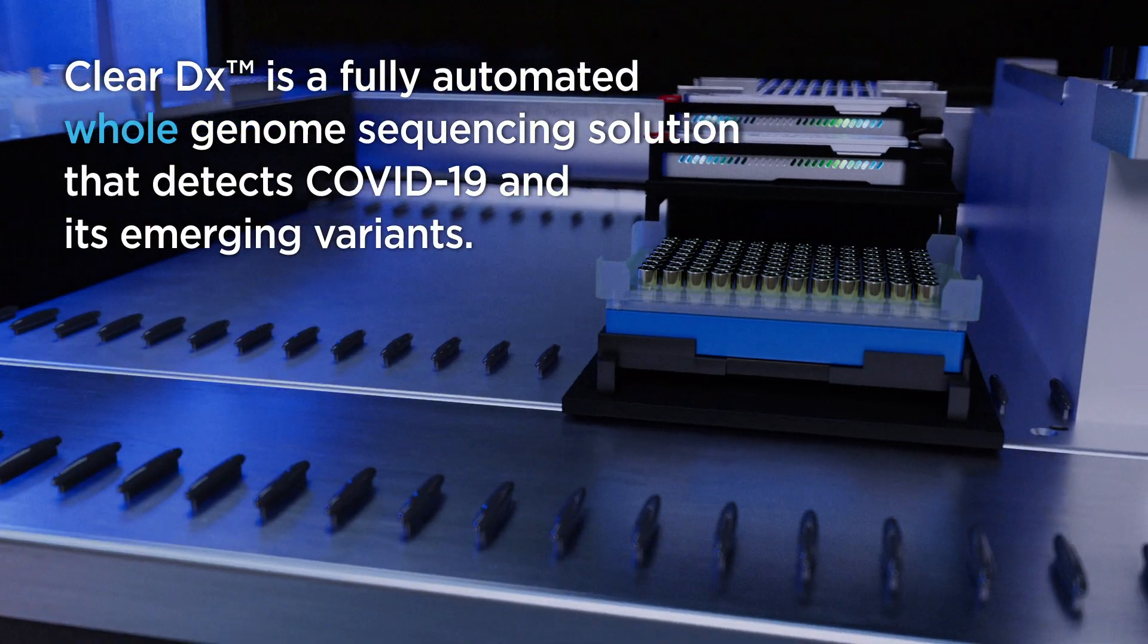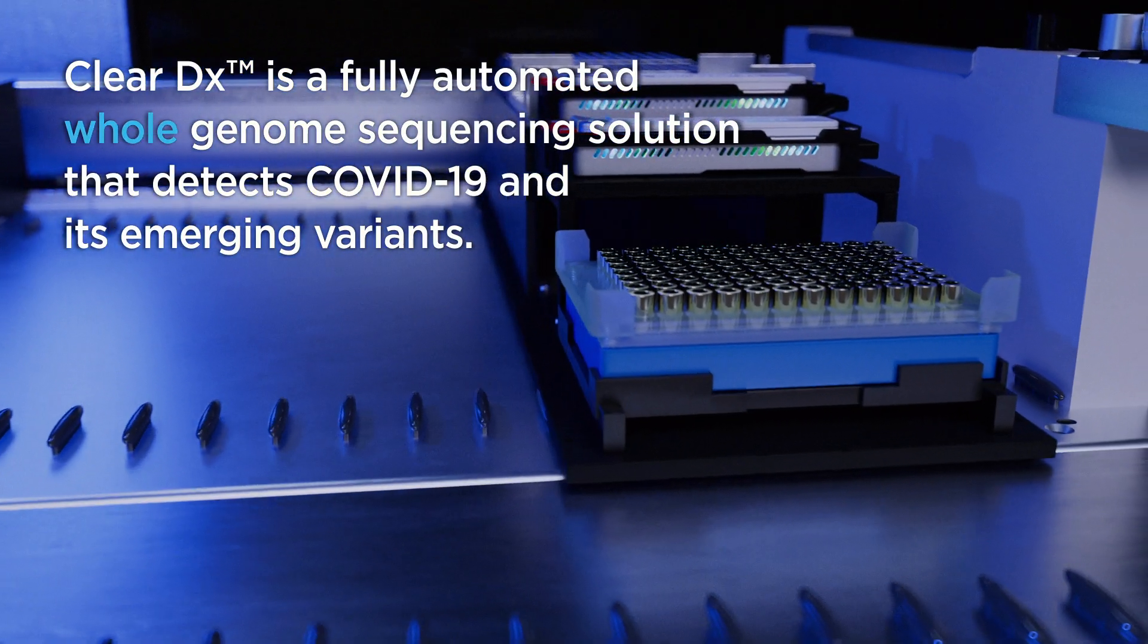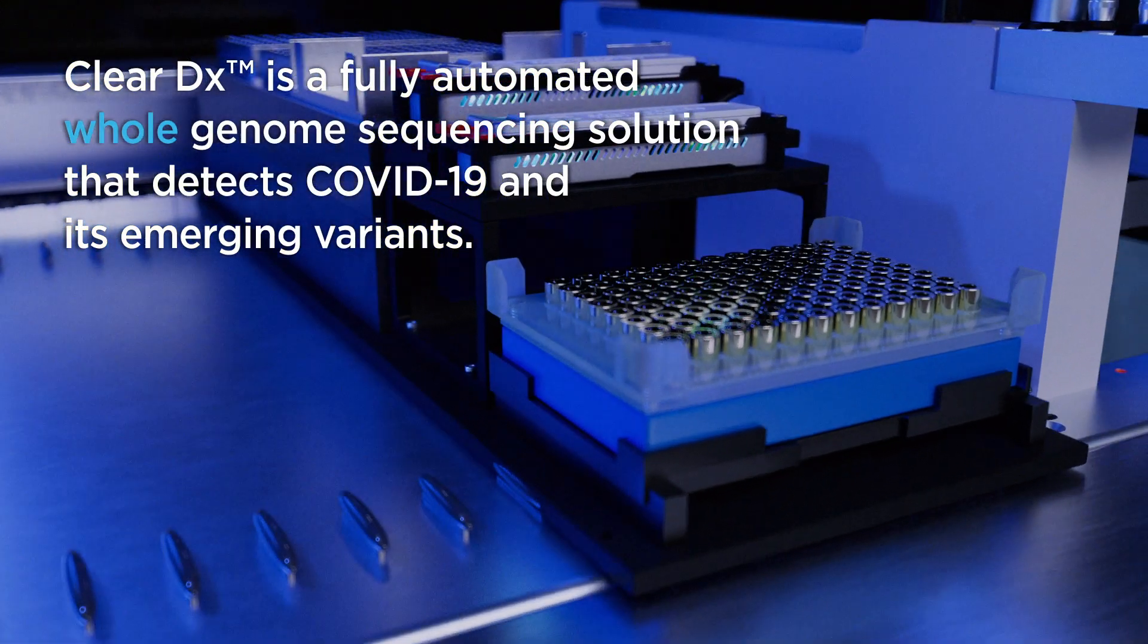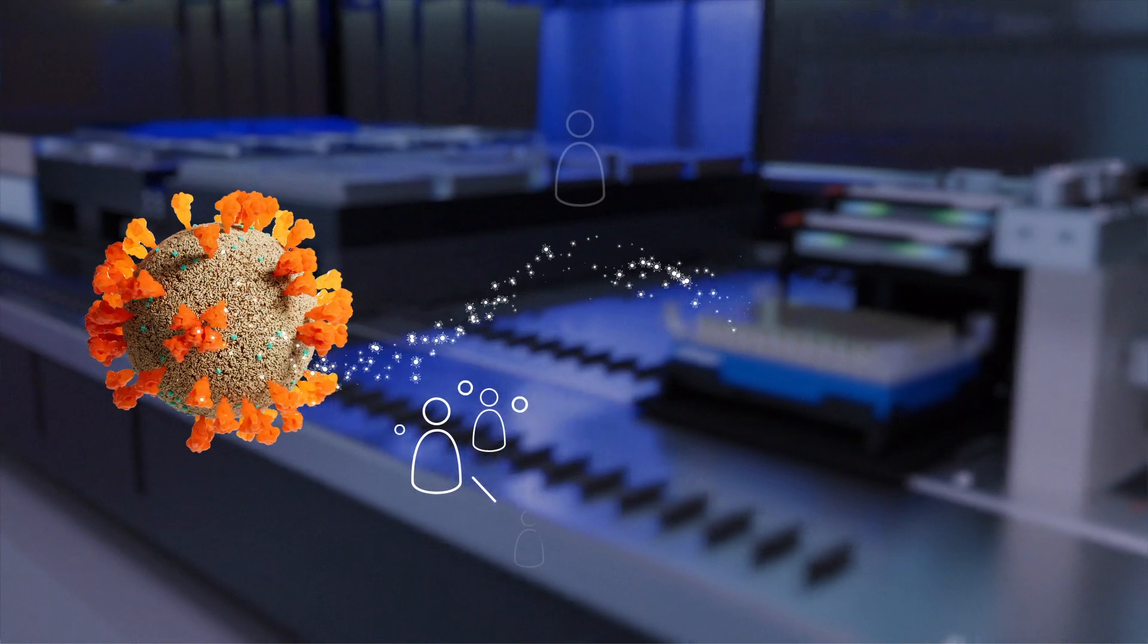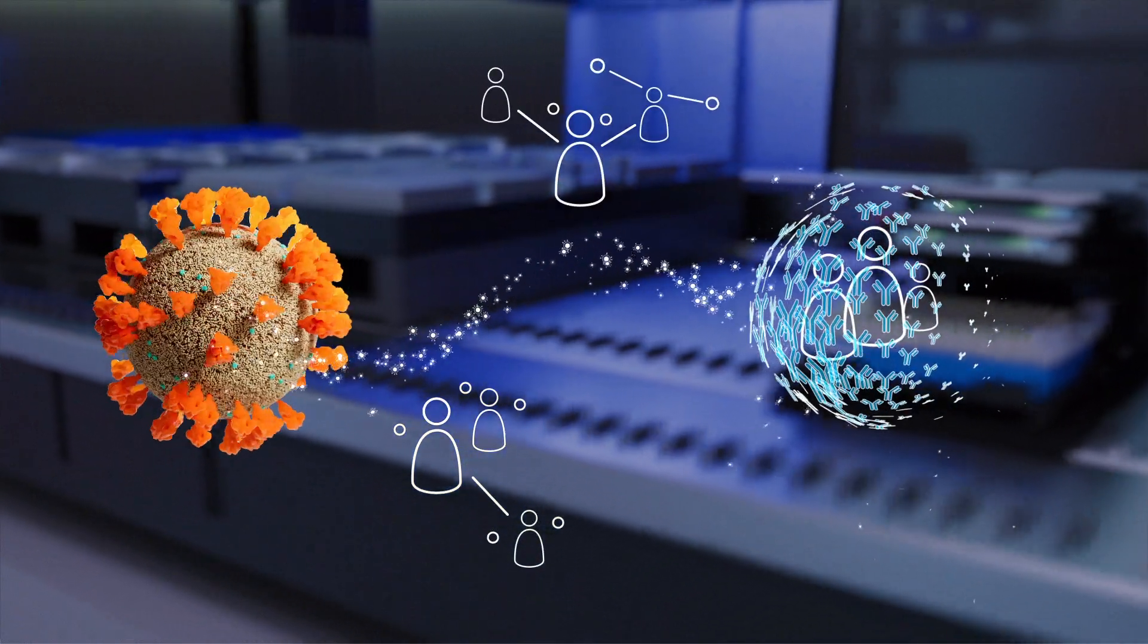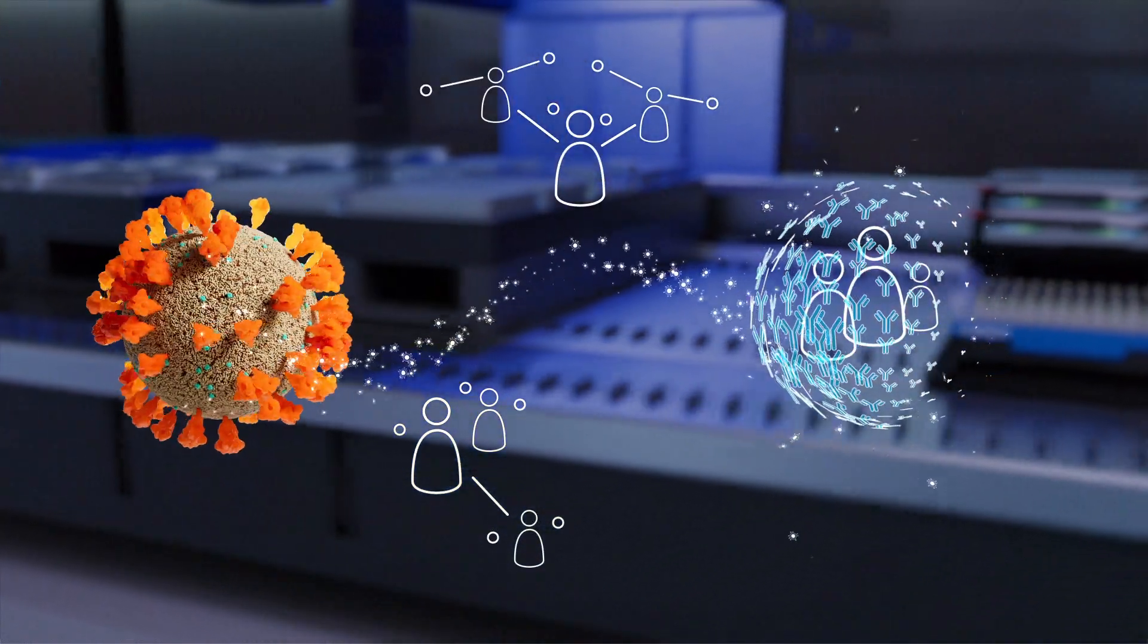ClearDx is a fully automated whole genome sequencing solution that detects COVID-19 and its emerging variants. Such a quick turnaround time improves contact tracing and the ability to respond to new outbreaks.